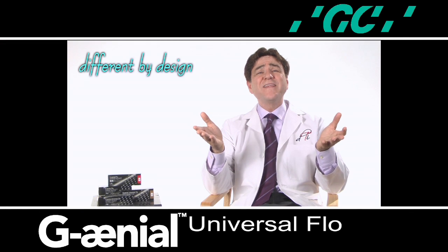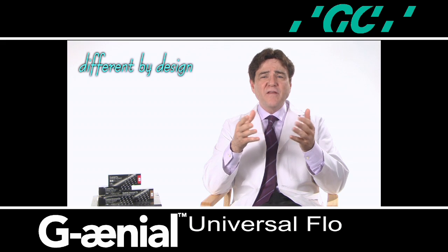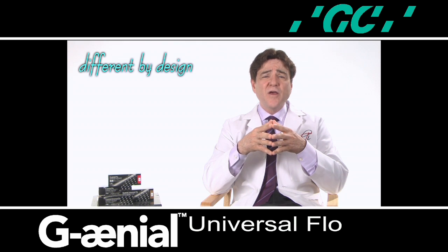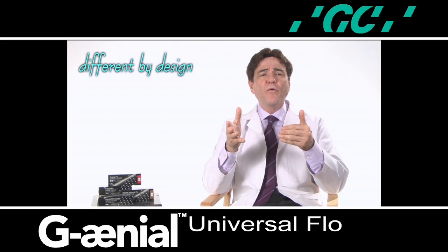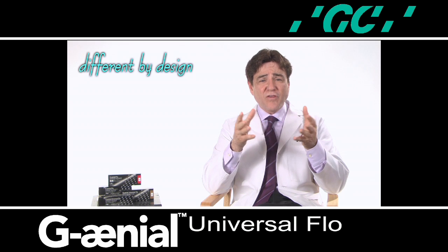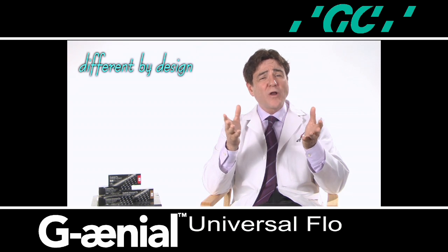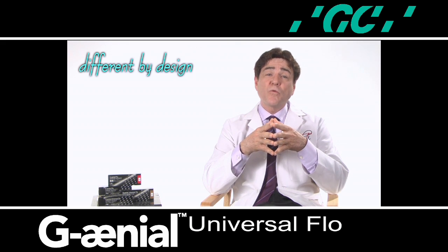Today, improvements in resin chemistry technology, optimization of material properties, and the development of innovative techniques for placement have made composite resin more user-friendly and reliable. Until recently, the flowables were clinically indicated and acceptable as filling materials in low-stress applications, such as cavity liners, sealants, preventative resin restorations, small Class 1 restorations, Class 2 substructure, small Class 3 restorations, and Class 5 restorations.